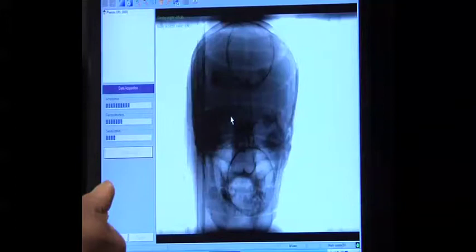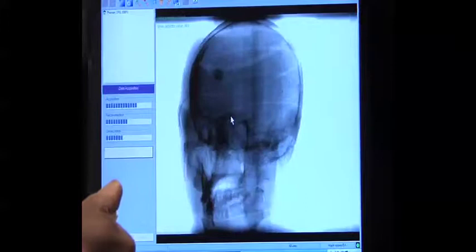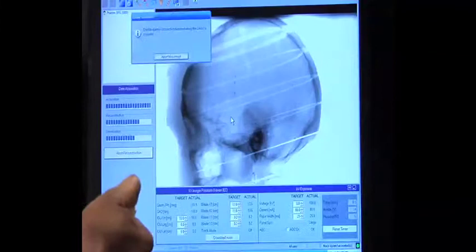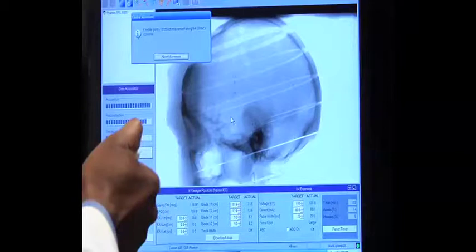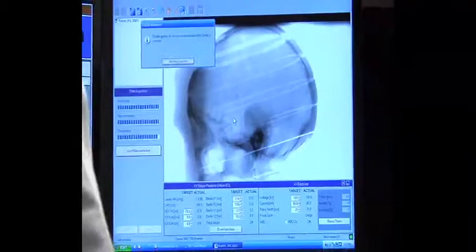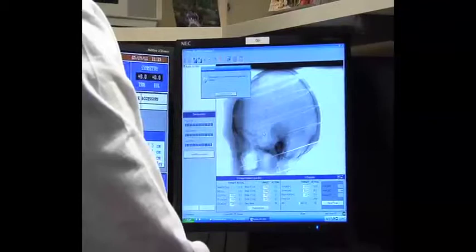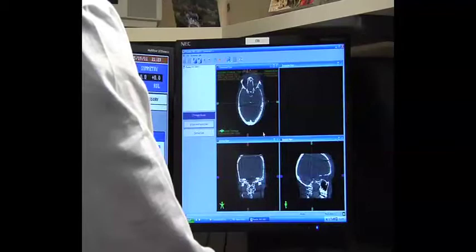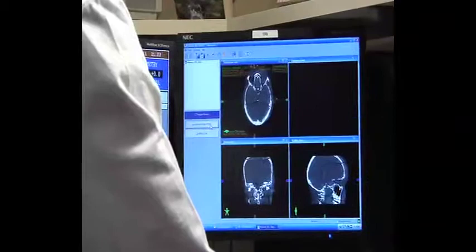Right now we are acquiring projections. Our projections are not a full 360 degrees — we will start rotating at 22 degrees and we will stop at 180 degrees. I have completed my acquisition of projections and then I will move my couch back to its original position from its safe zone. I am going to accept my reconstructed scans and export them for image registration.